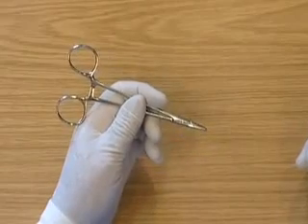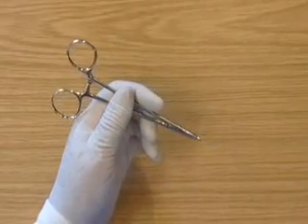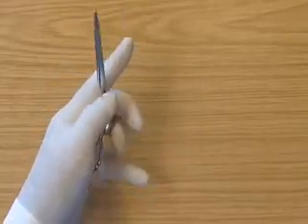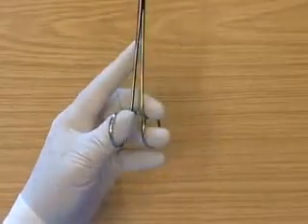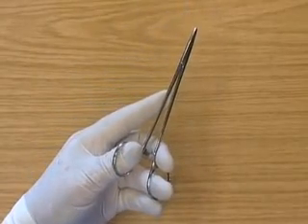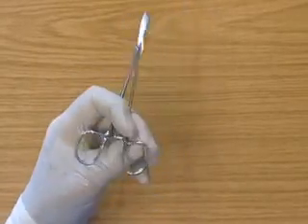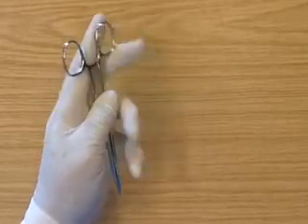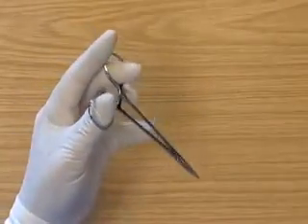The left handed pen grip. For inserting the needle, to unlock the needle holders it is necessary to change to the standard grip. Or from the pen grip, changing to the reverse grip for unlocking the needle holders.